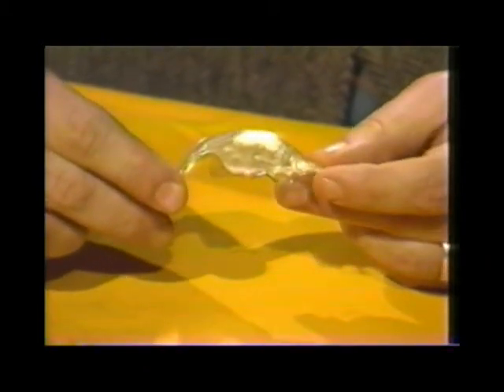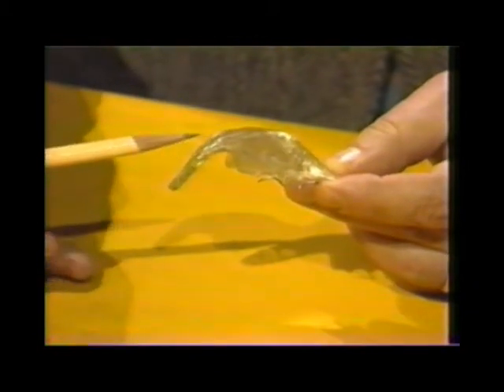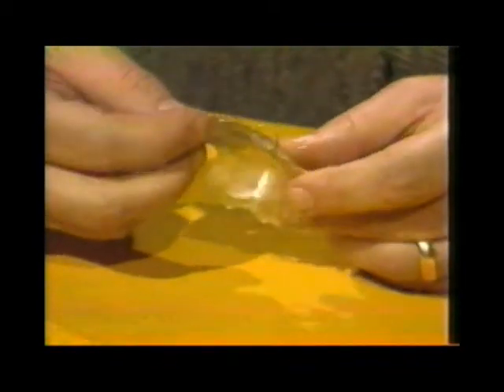We're going to talk a bit about a palatal lift and also the gag desensitization procedure discussed earlier. This is not an actual palatal lift — it was built for me. You can see on this close-up that the tail portion is rounded and down, which is obviously not what we want. As we talked about in class, that extension should basically come out at least at the level of the palatal plane, if not higher. This is the retainer portion with the clasps.